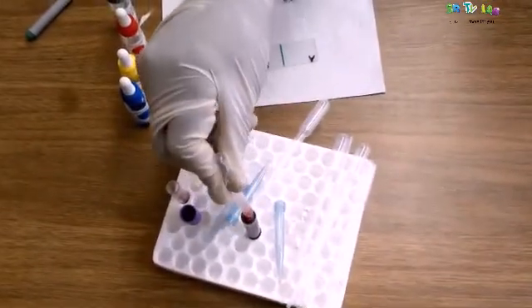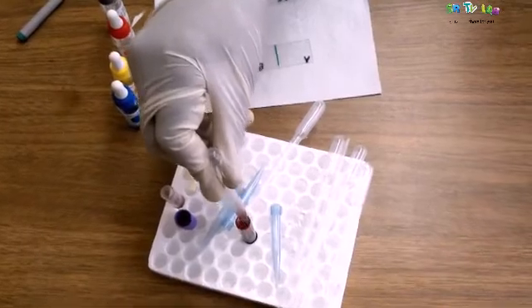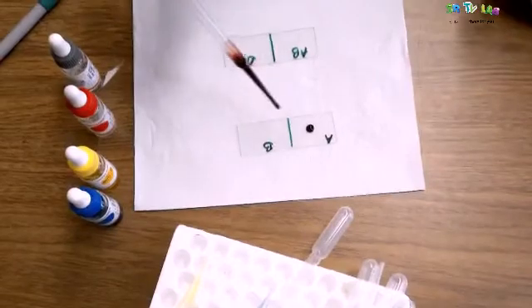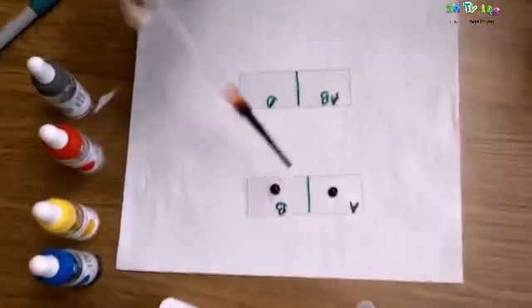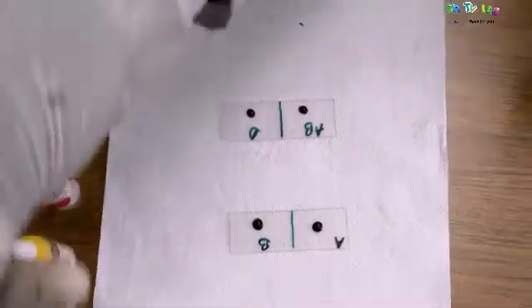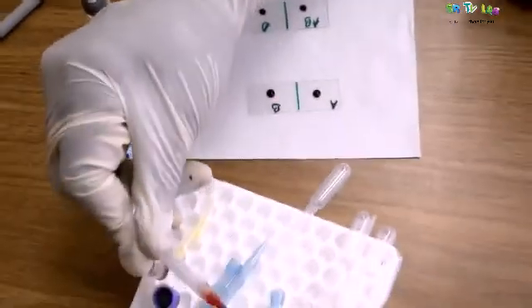Here we have a blood sample. We are going to use the same blood on every part which is labeled. Then we will be mixing every part with its corresponding antibody.